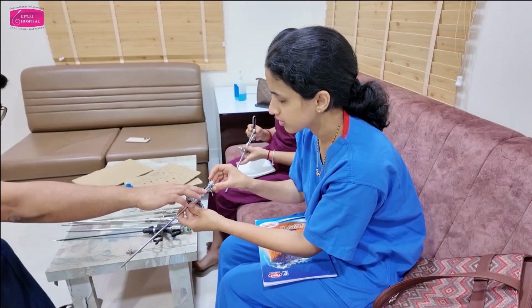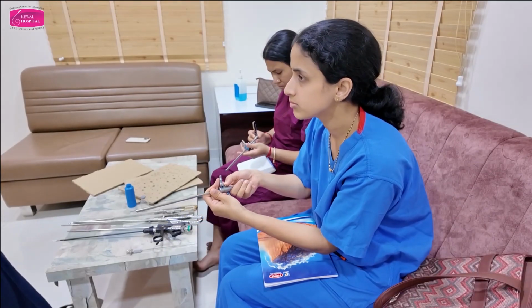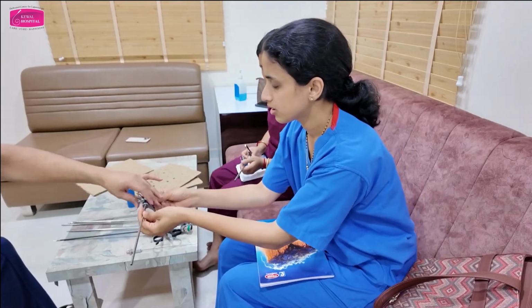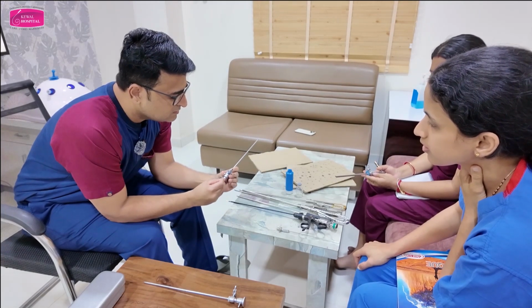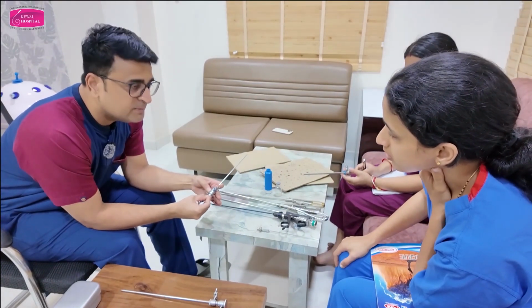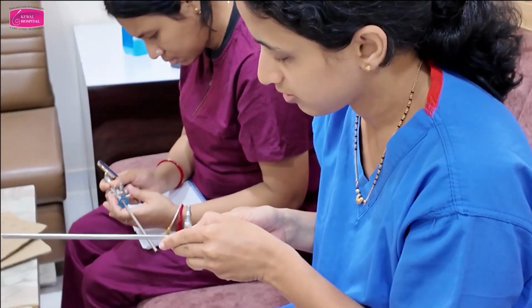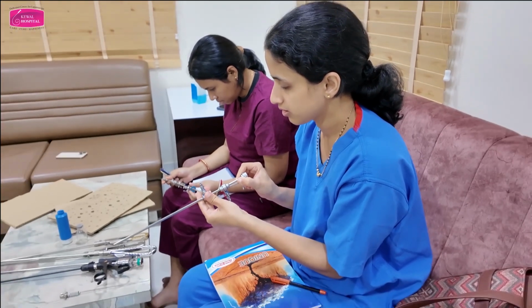So this is the inner sheath, no? You have to remove this outer sheath. Anti-clockwise. Whenever you are removing something, anti-clockwise. Remember always. Pull. Unlock first. Unlock everything. See, if the lock is half open, it will not come out. You have to completely open the lock. See, this is completely open. Once you completely open the notch, it will come out. Understood? It's very easy, not difficult at all. Try once again. Just slide in and lock it.